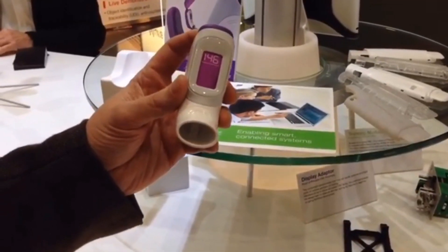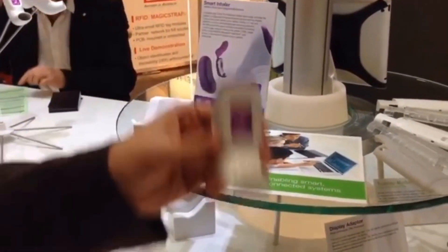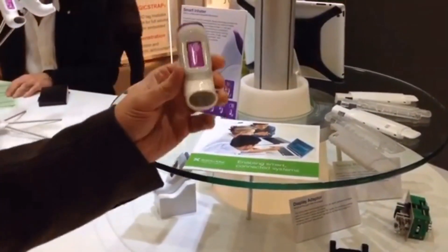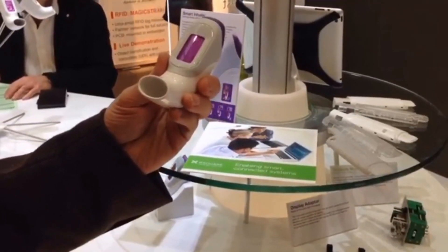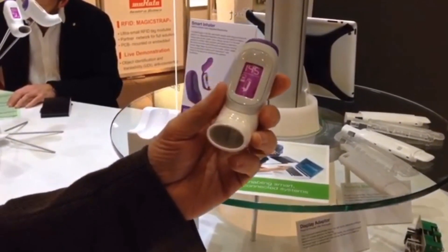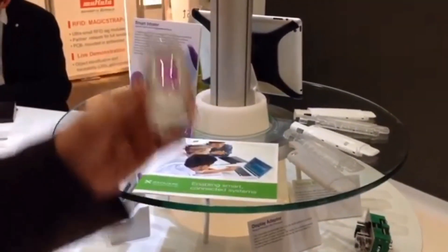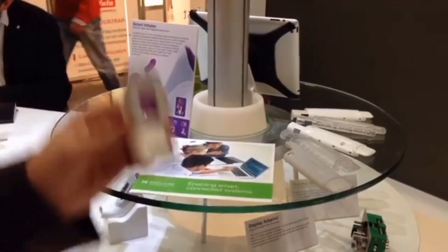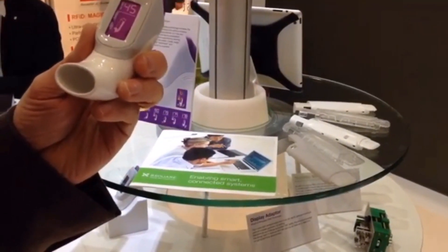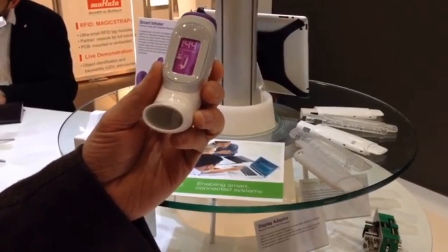I am taking a double dose. So the first step, I need to agitate the device to mix the drug. This is sensing whether I am doing it properly. And now it is ready to take, or simulate taking, the drug. And for the second dose, I need to agitate again. And that is now ready to take or simulate taking the drug. And there is a timer to let me know the correct time.